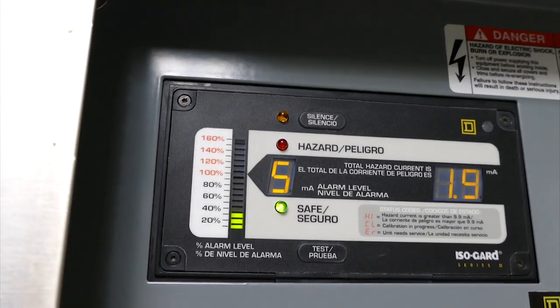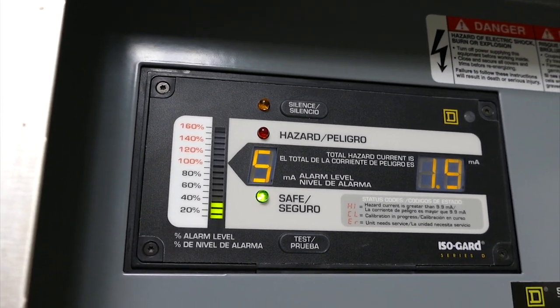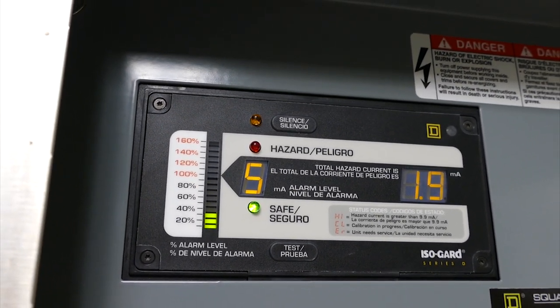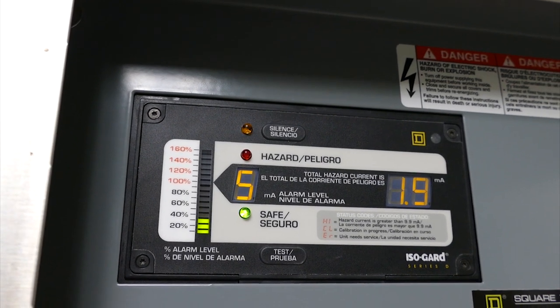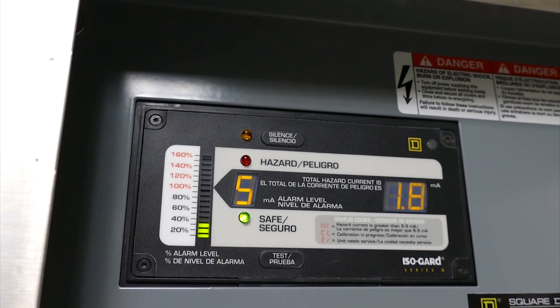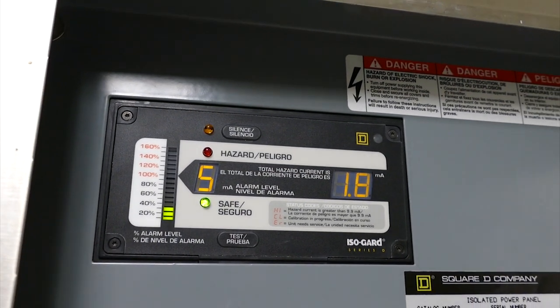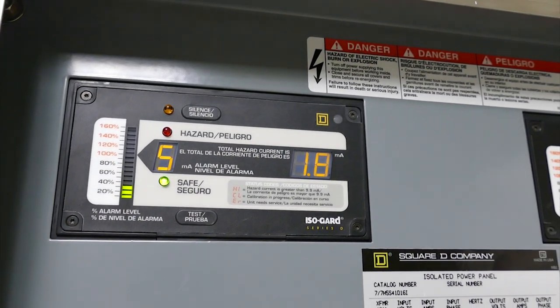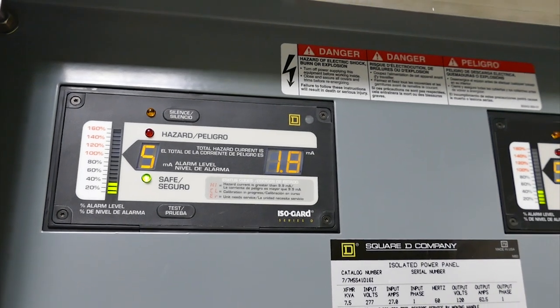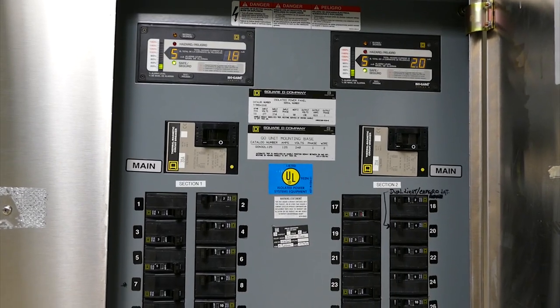Now if you look over here you can see that it's barely loaded up. When it gets to 4.5 that's when it switches over to hazard, and then when it hits 5 milliamps which is the maximum amount, it will switch over and go to alarm condition. So that would be the line isolation panel.